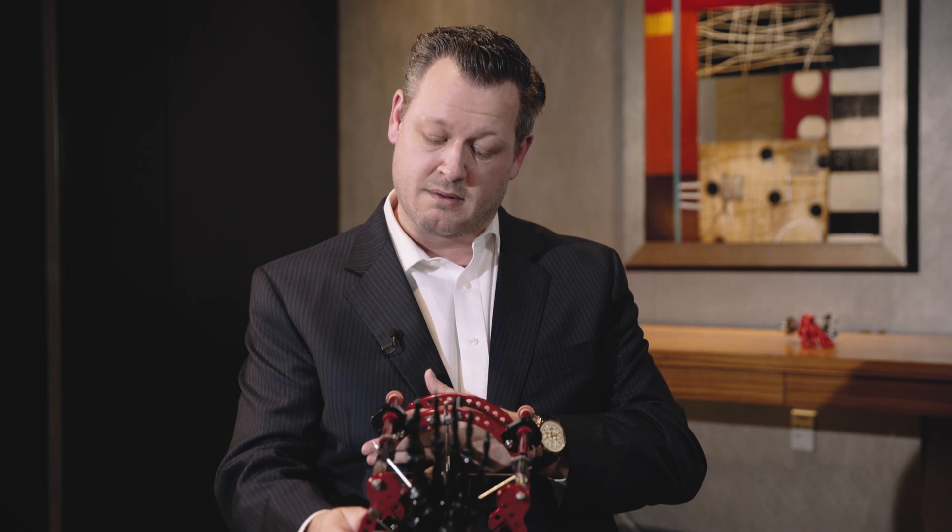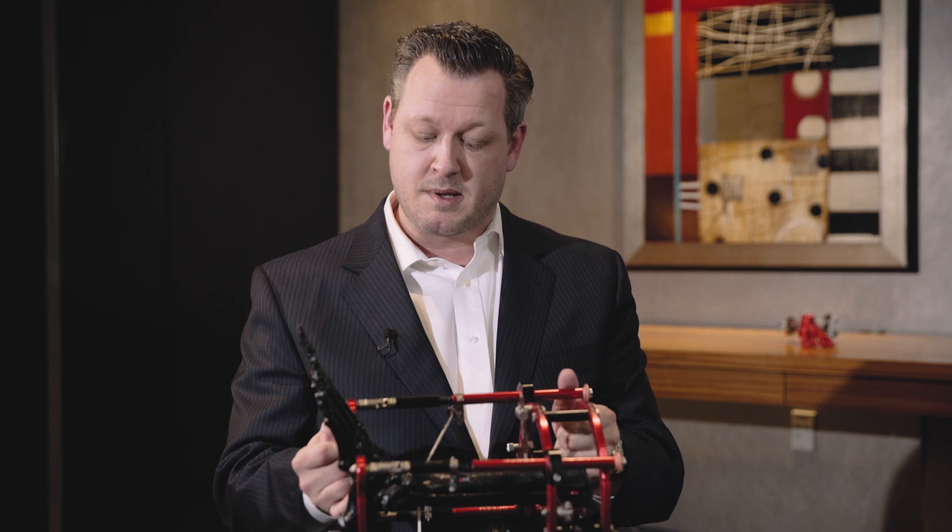Because of the versatility of the Speed Frame, the patient did not have one incision placed on her leg. We were able to reduce the pathoanatomy, get the frame into position, and salvage the structure of the patient's leg. She left that hospital not only with her leg, but with a completely functional limb.